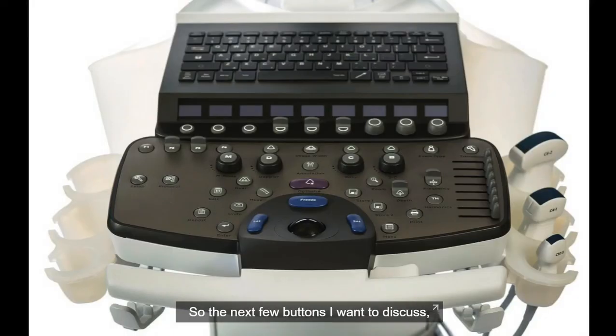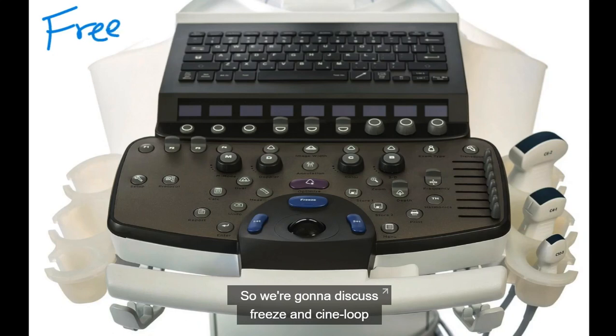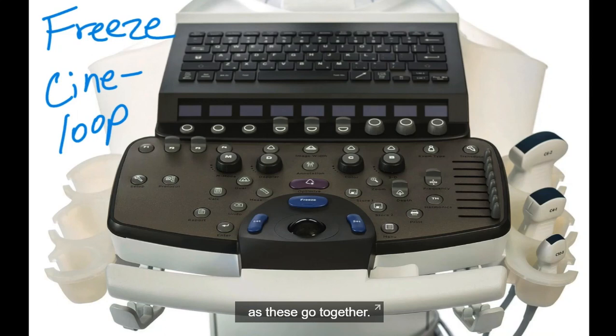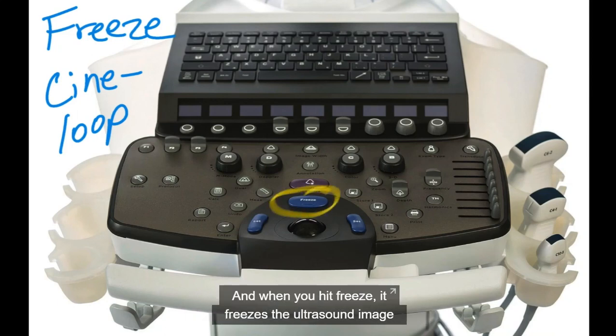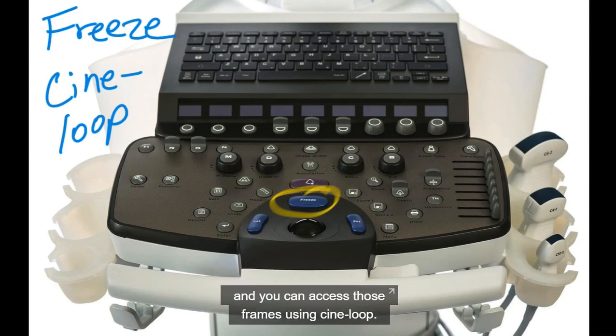So the next few buttons I want to discuss, I want to use this ultrasound machine image to illustrate. So we're going to discuss freeze and cine loop as these go together. Now freeze is pretty self-explanatory. It's this button here in the middle. And when you hit freeze, it freezes the ultrasound image right at that frame. What you may not know is that the ultrasound machine saves anywhere from 20 to 200 plus frames before you hit the freeze button. And you can access those frames using cine loop.